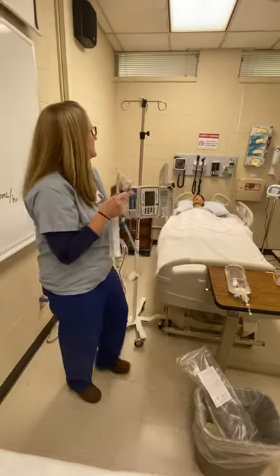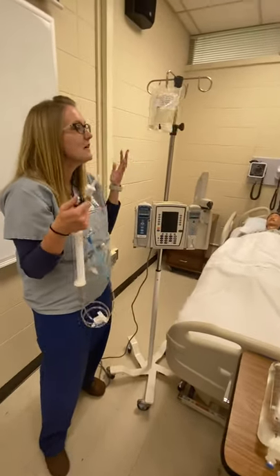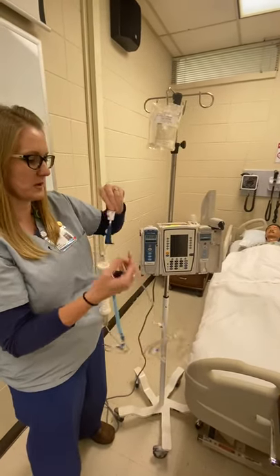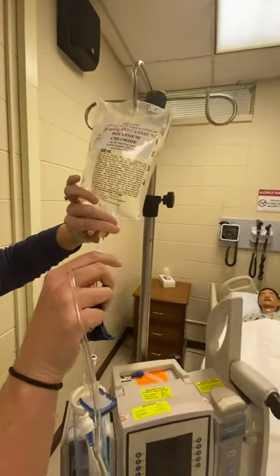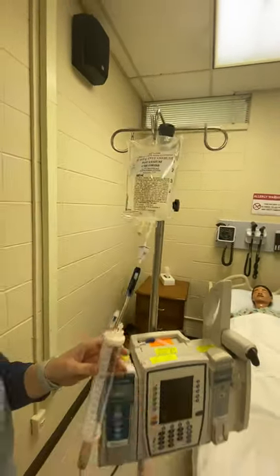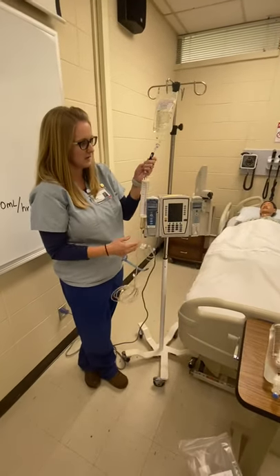Get your fluids — because you don't have three or four arms — let's hold it on an IV pole or a hook or something to help you. You are going to spike your tubing without going through the side of it. Now it's spiked, but you notice it's not running because I have this roller clamp clamped.